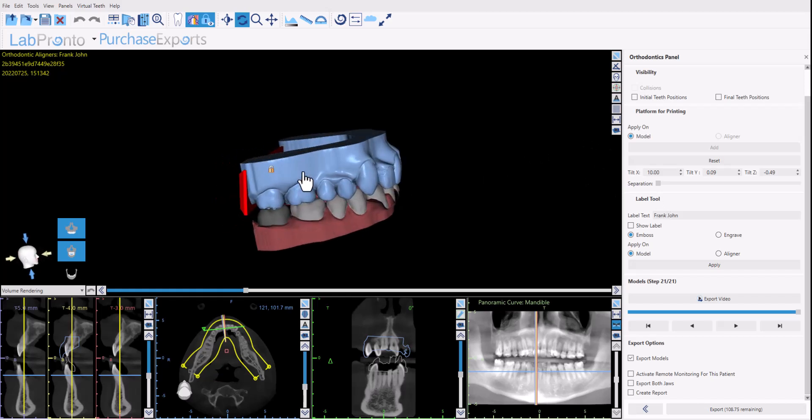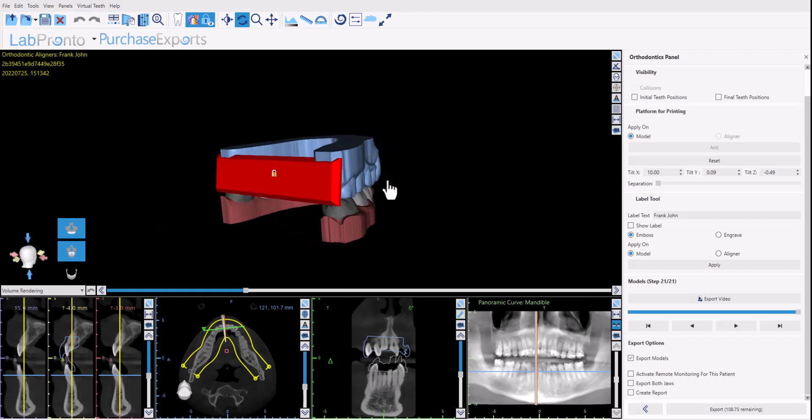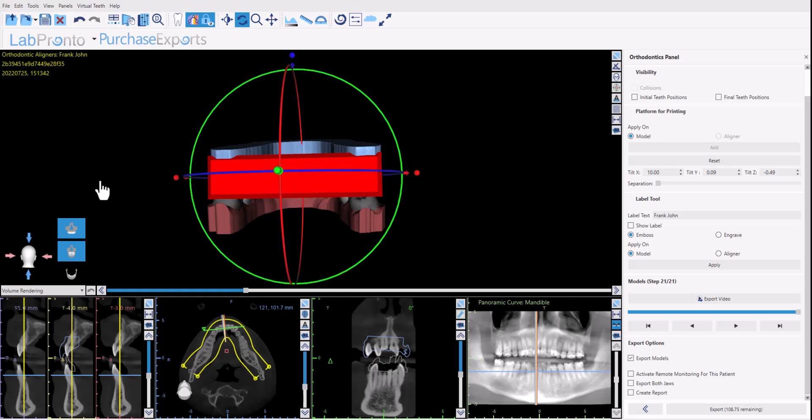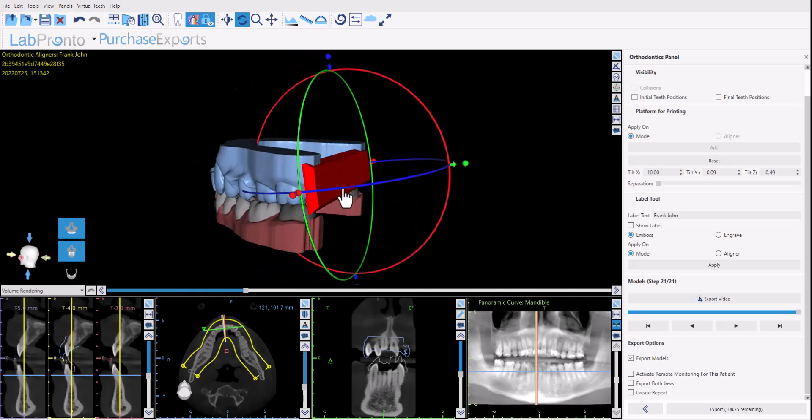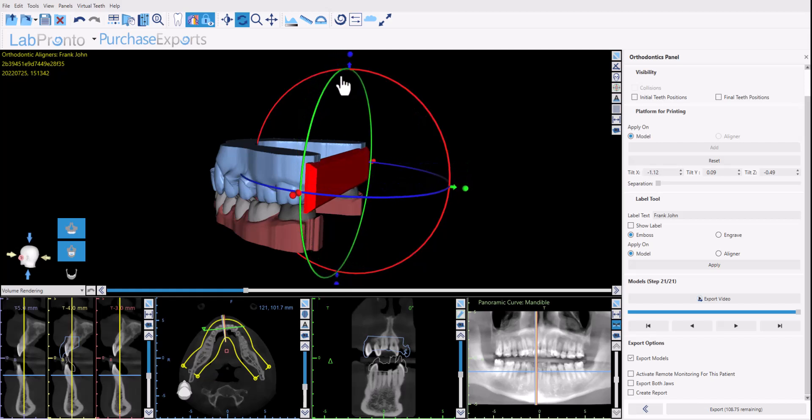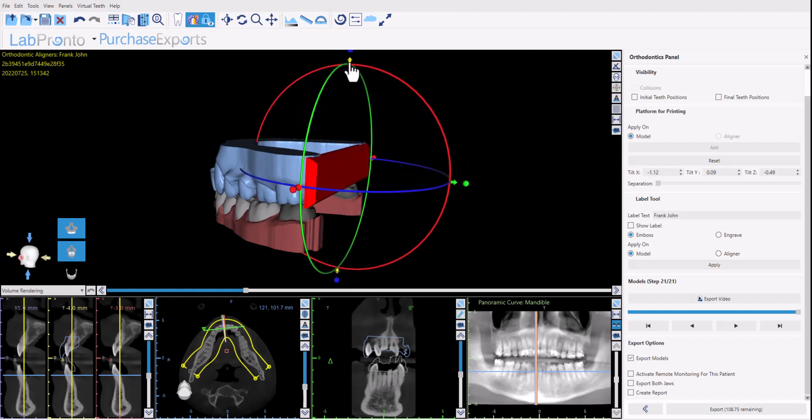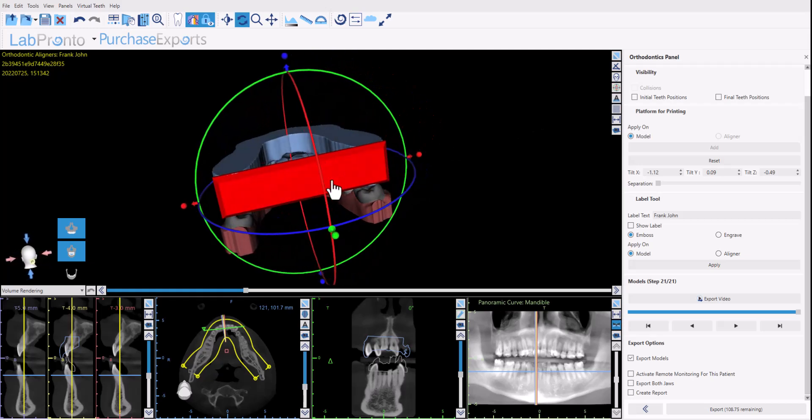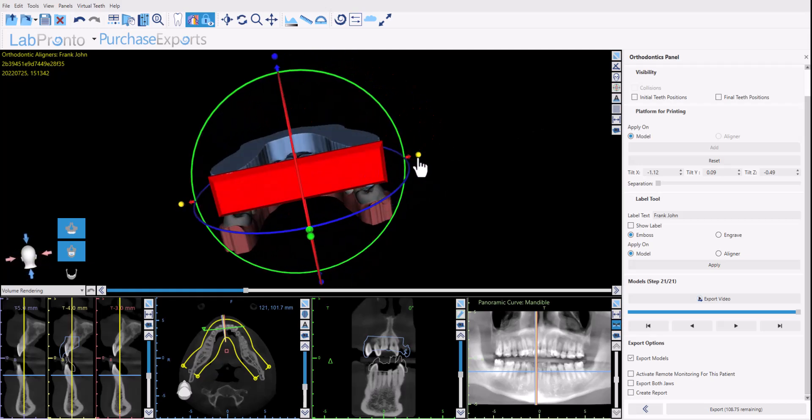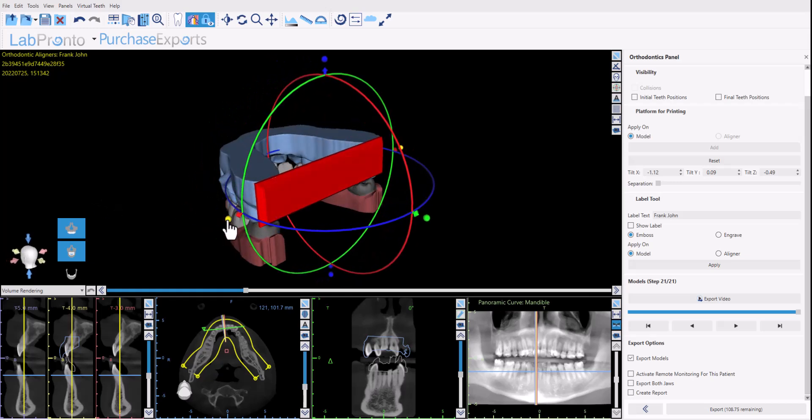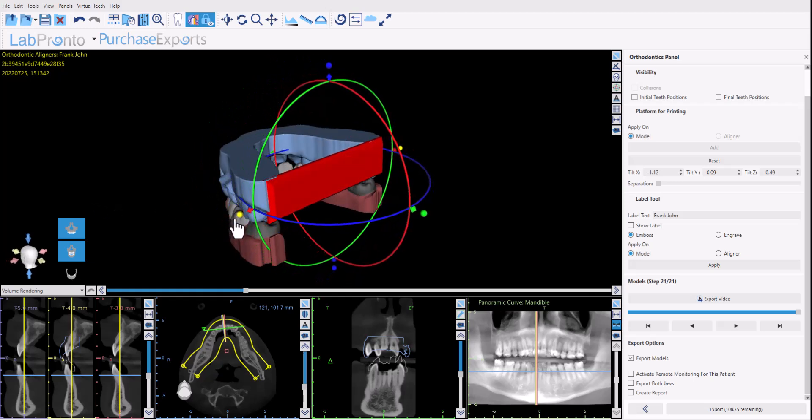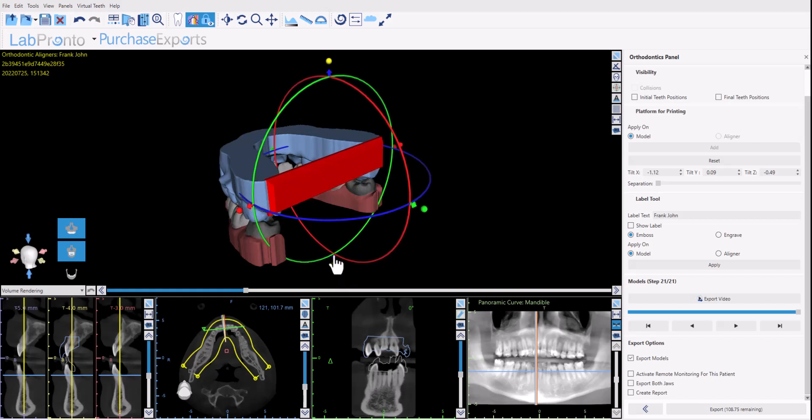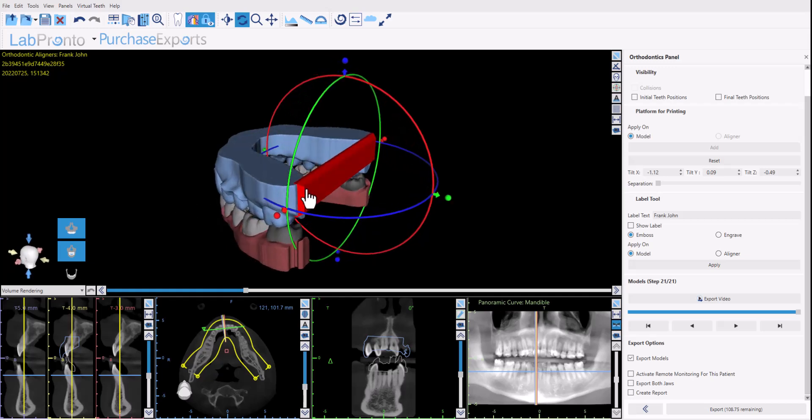So we could see for our active upper arch that the software drops in a platform. You could click unlock and now when you left click on the platform there's a widget that allows the platform placement angle and dimensions to be modified. You could rotate and move the platform as relevant. Use the nodes to change the platform size. It should cover the base but should not protrude and of course it should be connected and overlapping with the model.